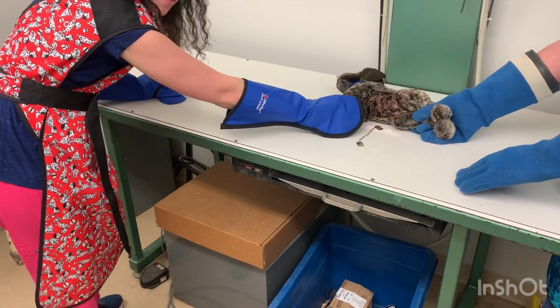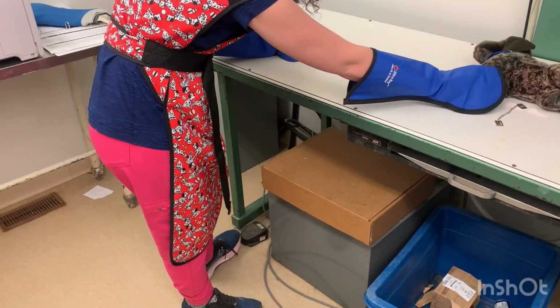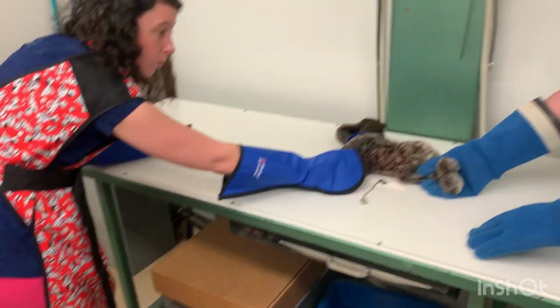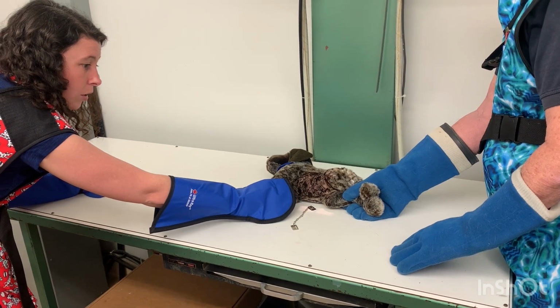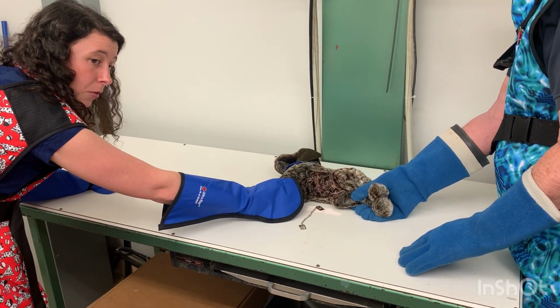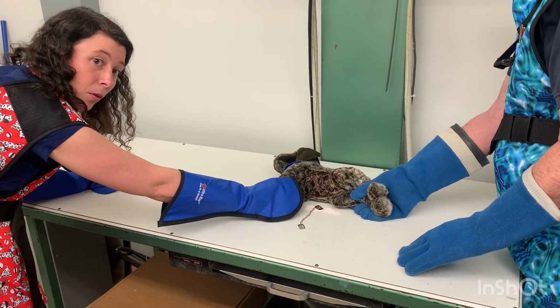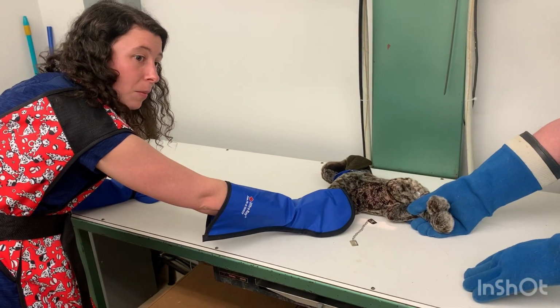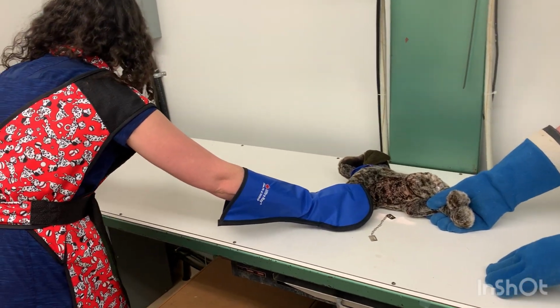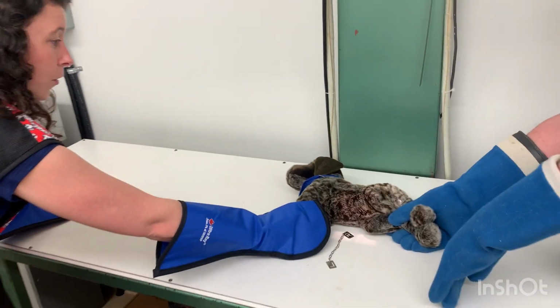So now what I would do, I'm not going to actually do it, but what I would do is I press down on our foot pedal here, and our foot pedal is going to start to generate, and then we're actually going to press down on it after about 1 Mississippi. So basically we're waiting until a few seconds have passed by, and then we press down on the foot pedal, and then on here, on the red here, it's going to flash, and it's going to say that we've taken an exposure. So that would be the first one.